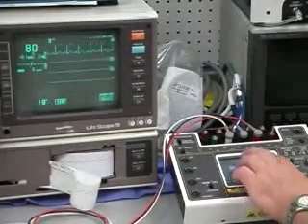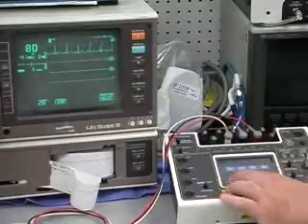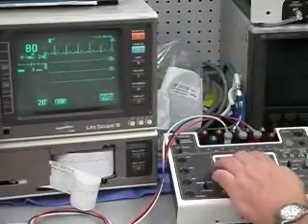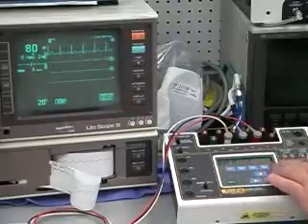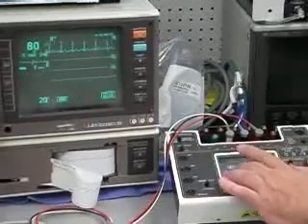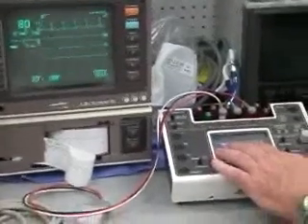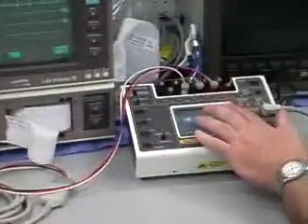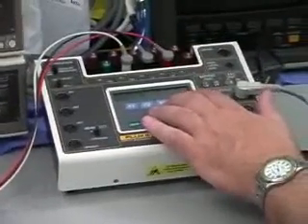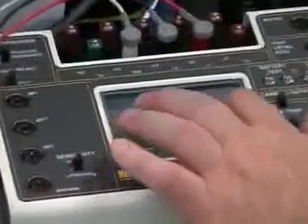Okay, and we didn't cover this. This is a custom programmable PVC mode. Whereas before you could just insert one if you'd like to at any time, what you can do is select one of any 4 focus points of PVC: left ventricle and right ventricle, more of a standard morphology. Then F3 is a left and F4 is a right at different sites within the ventricles. So you can pick, okay, that's a focus of number 1.